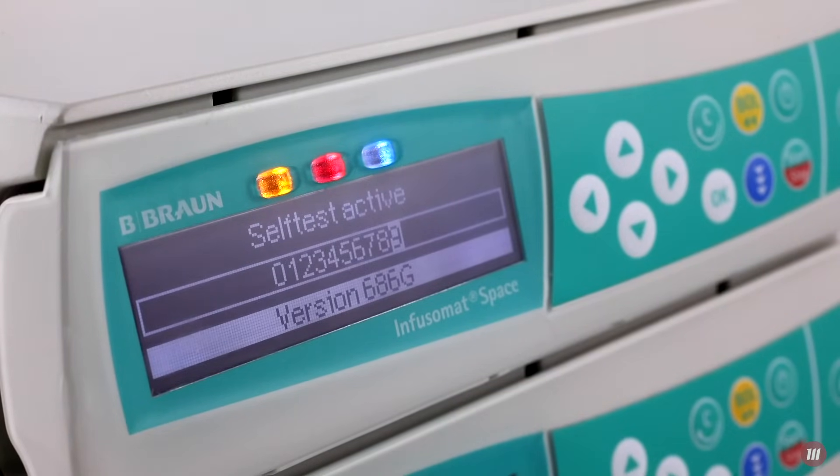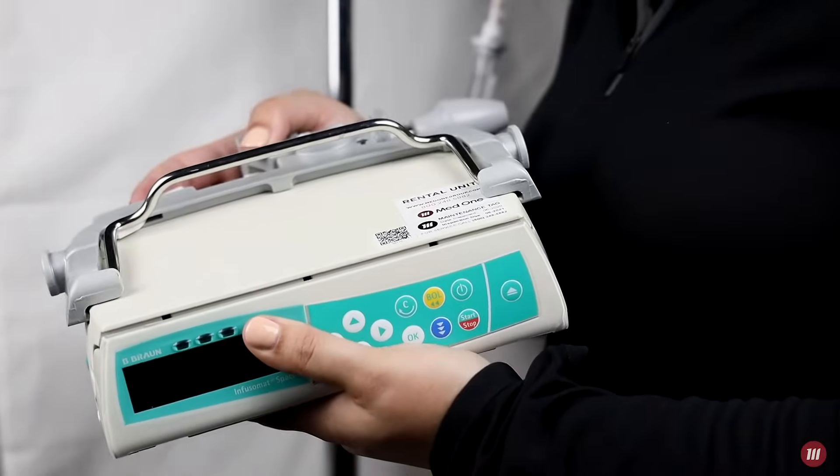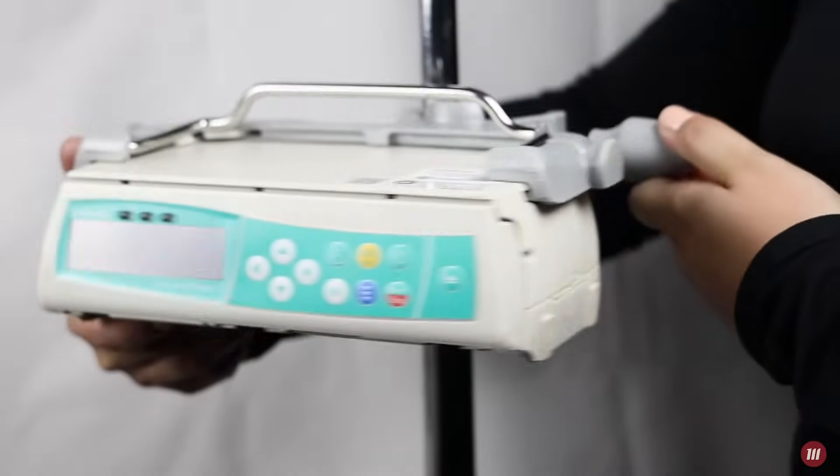Used as a single-channel pump, the rechargeable battery can last up to four hours. The Infusomat can be easily attached to an IV pole with the adjustable clamp.